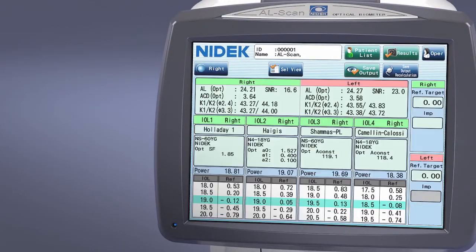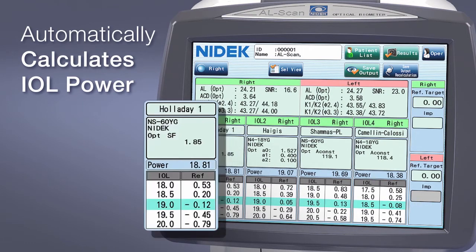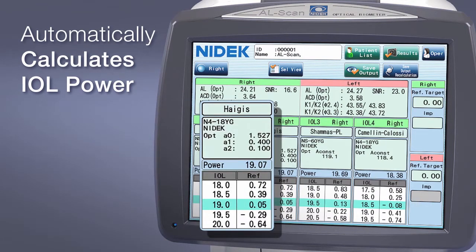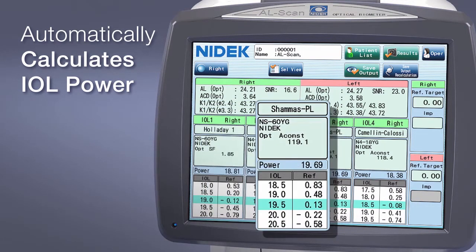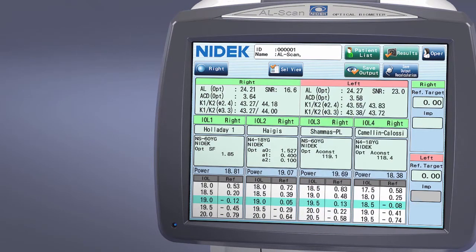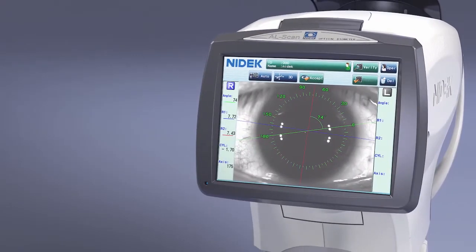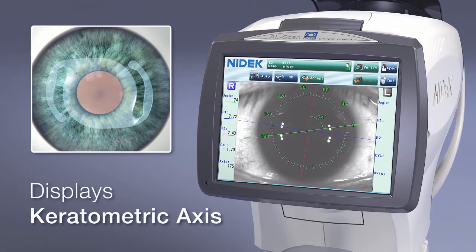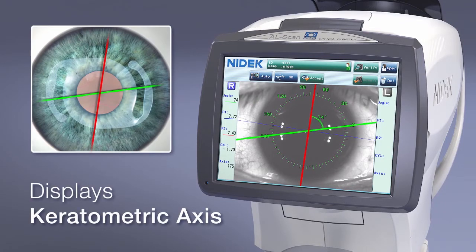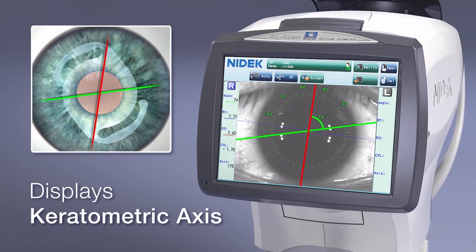The AL scan automatically calculates the optimal IOL power using its own measured data without the need for additional equipment. In addition, the keratometric axis is displayed on the eye image to assist with toric IOL alignment.